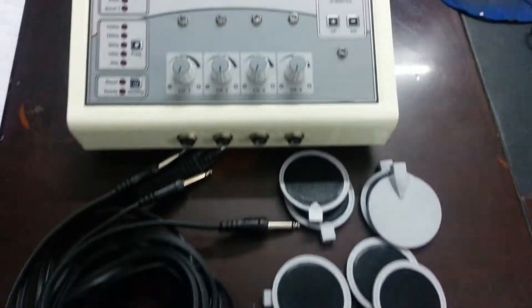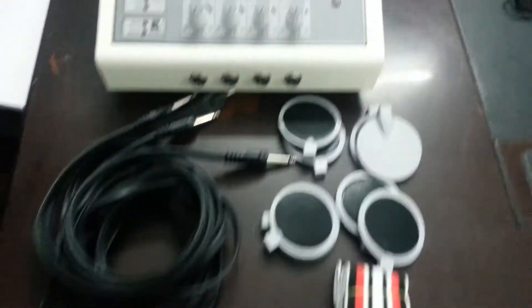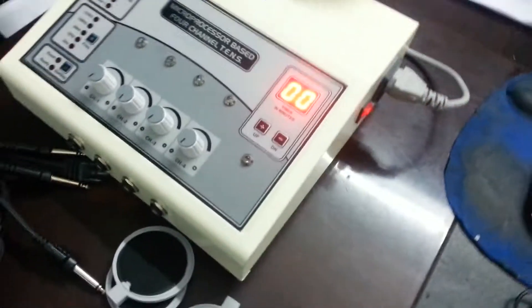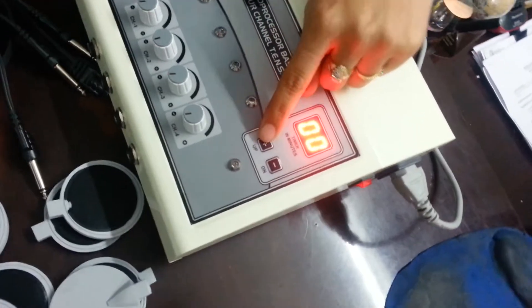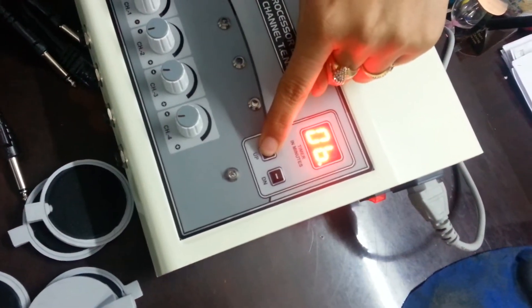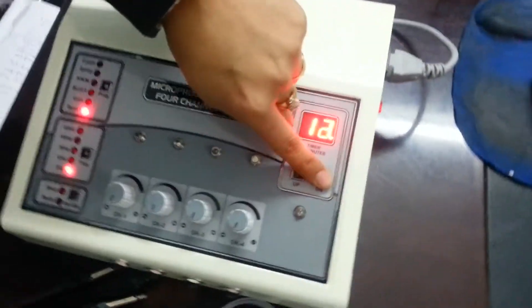Now we will show you the demo of the TENS unit 4-channel. Tense machine on. Increase the timer. Timer up. Timer down.